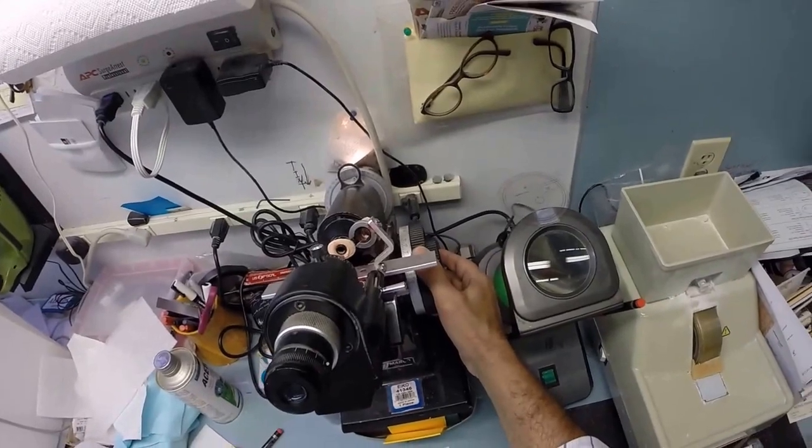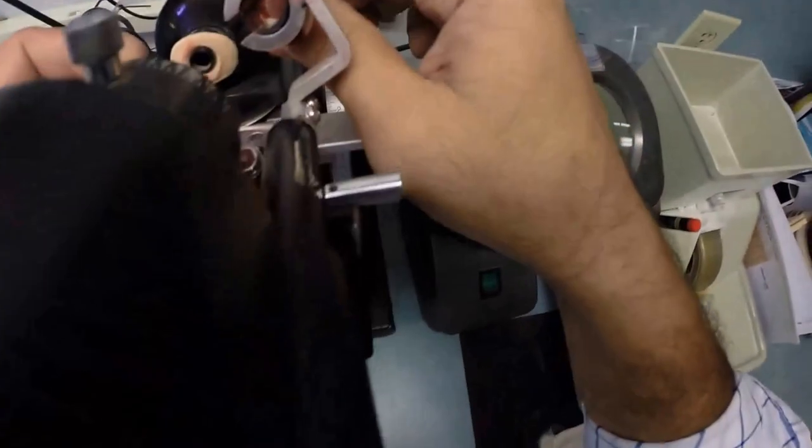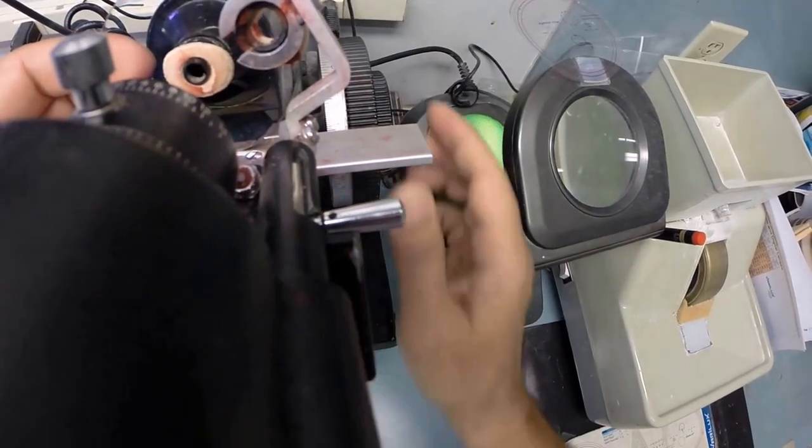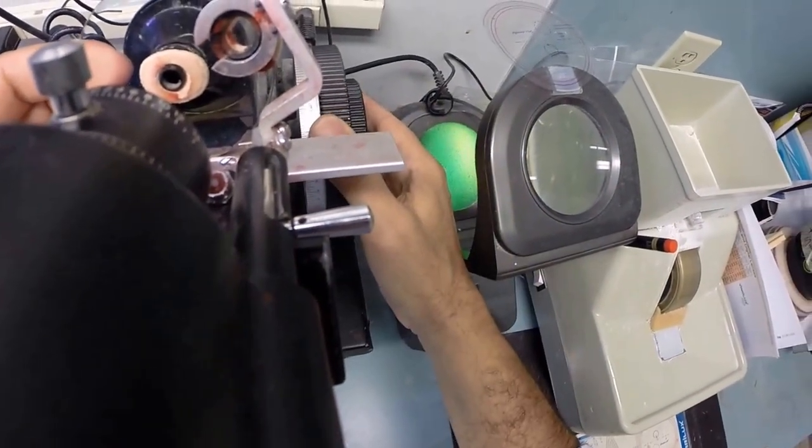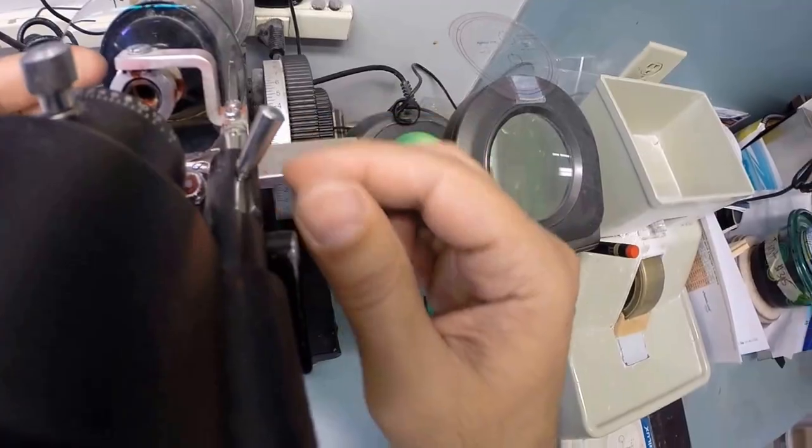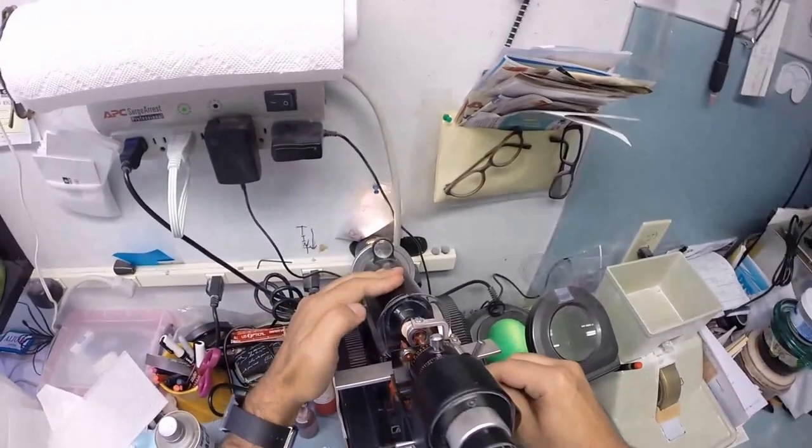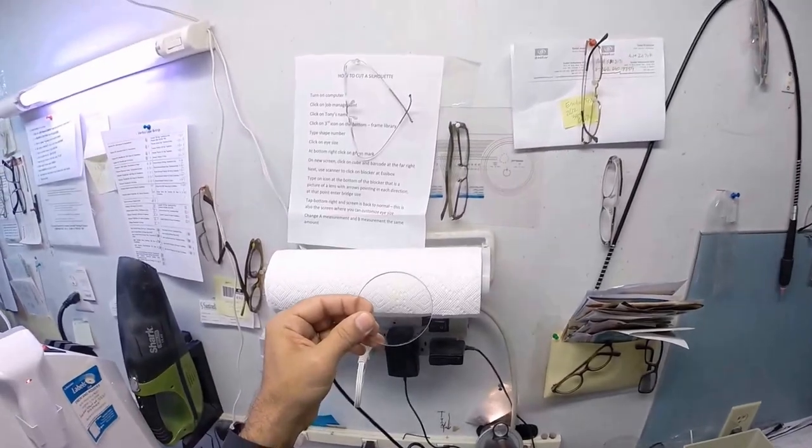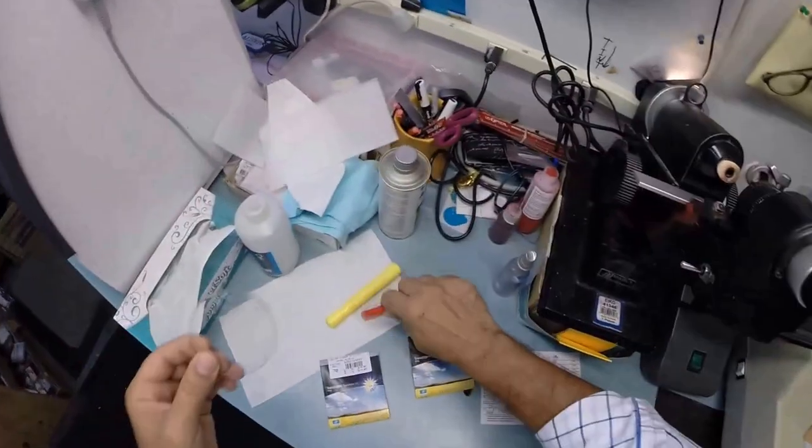I'm going to go ahead and take that out and remove the laminate. I'm going to put those on your lenses when I ship to you. Put the power drum at minus 1.25. Put your lens in. Rotate until the sphere power comes in clearly. Find the optical center of your lens. Check your astigmatism correction, of which you have just the tiniest amounts.